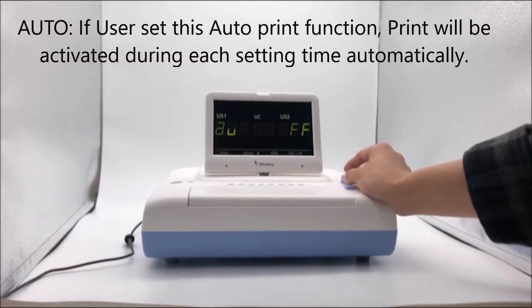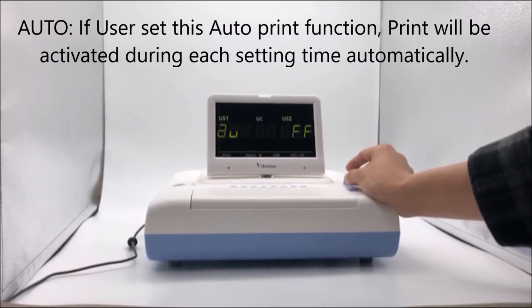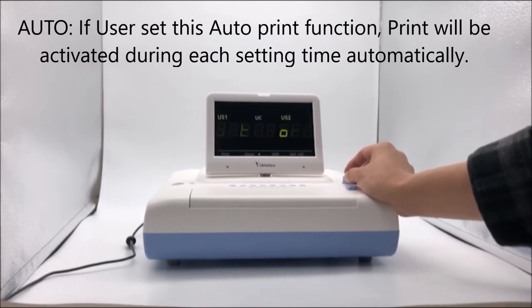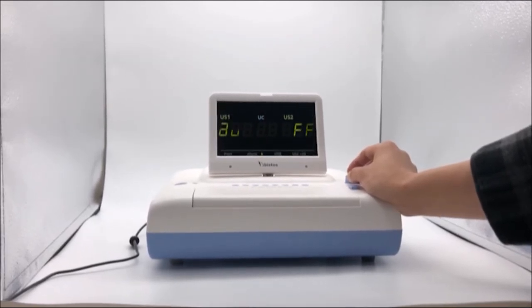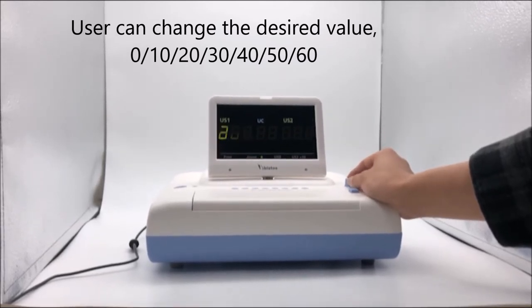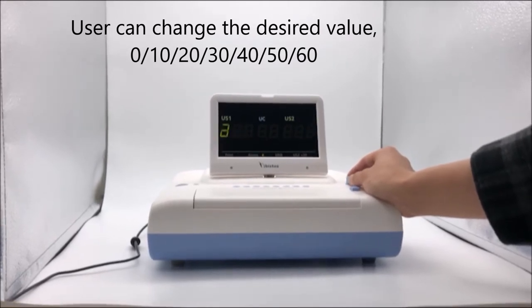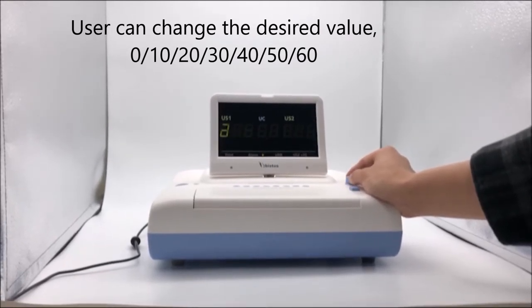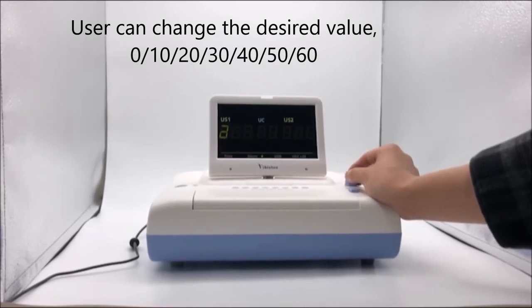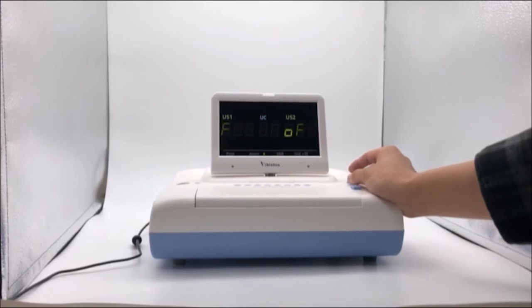Auto Print: if the user sets the auto print function, printing will be activated automatically during each set time interval. The user can set the desired value between 10, 20, 30, 40, 50, or 60 minutes. On or off.